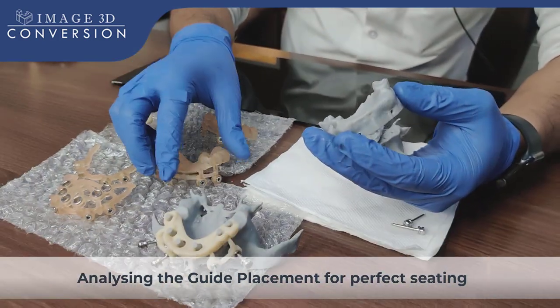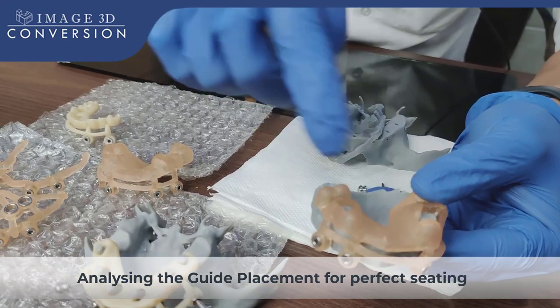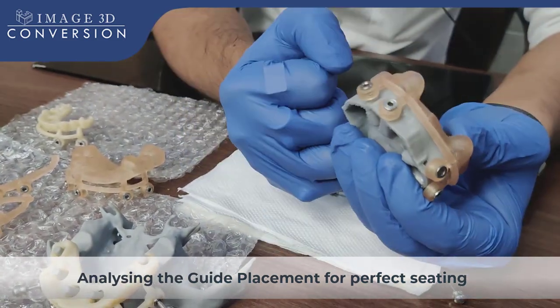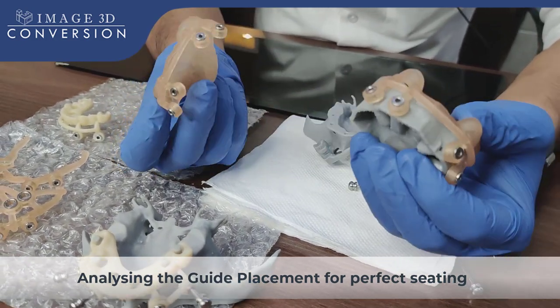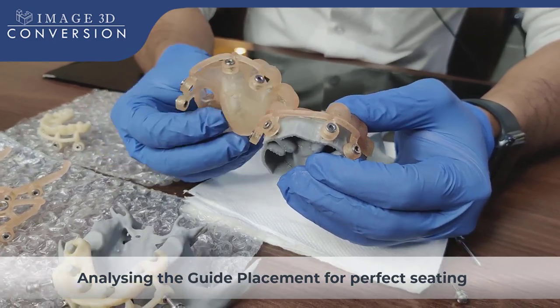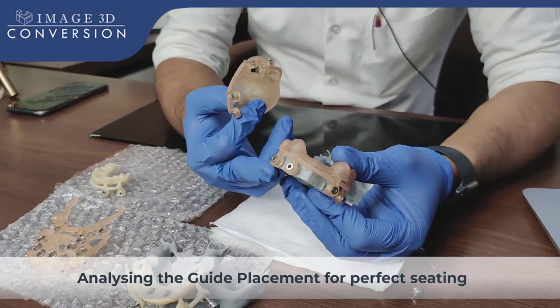Another guide I have prepared. If this guide is not precisely sitting, then another guide I have — without palatal engagement — only tooth-supported surgical guide. There also I'm getting the same fixation pin position. We have fabricated these two guides just for backup. We know the surgery is going to be done by our doctor, so just for backup we are sharing two surgical guides and the model also, just to have confidence that the surgical guide is sitting properly in the patient's mouth.